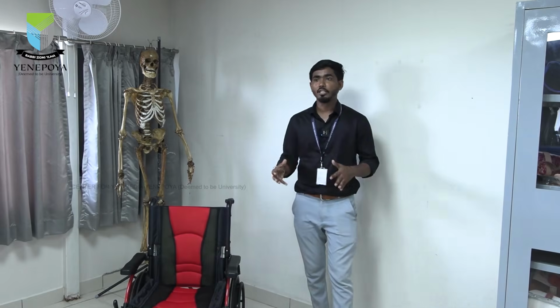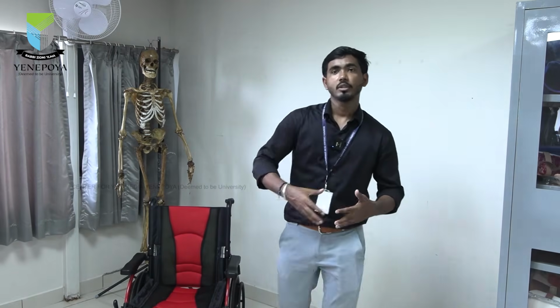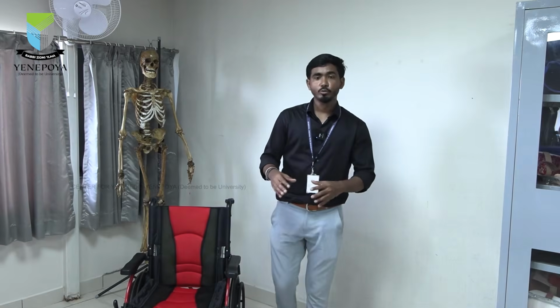So in this video I tried to summarize and talk about what I, as an occupational therapist, want the person to be independent in their life. These wheelchair skills were mostly demonstrated with patients with spinal cord injury. That doesn't mean only spinal cord injury persons have to use this wheelchair. A person who has not been walking for a long time can also utilize these wheelchairs. Thank you.